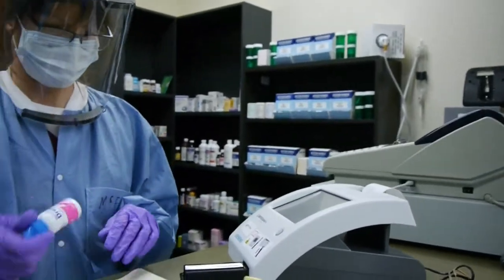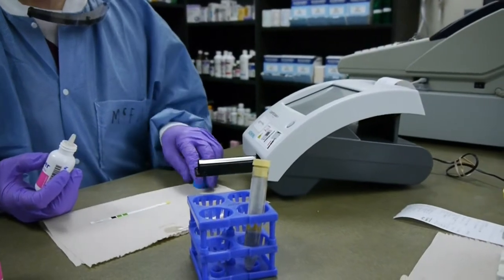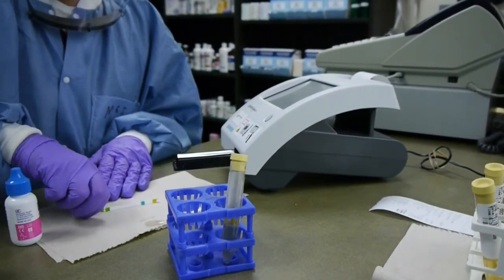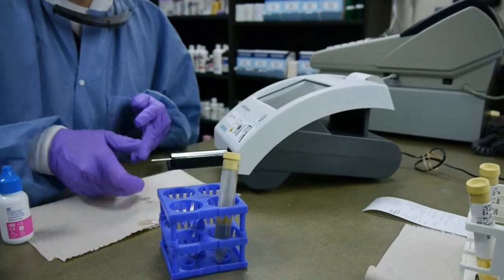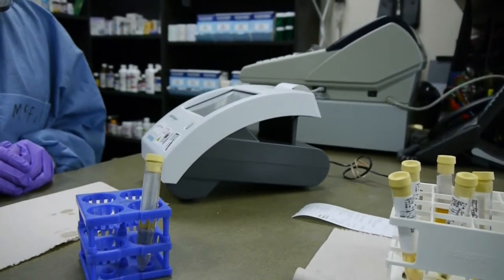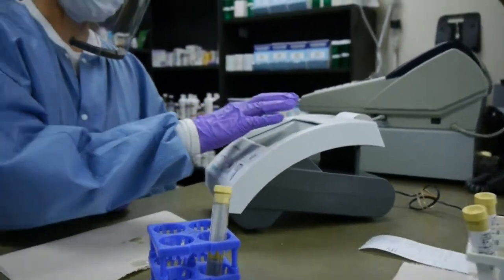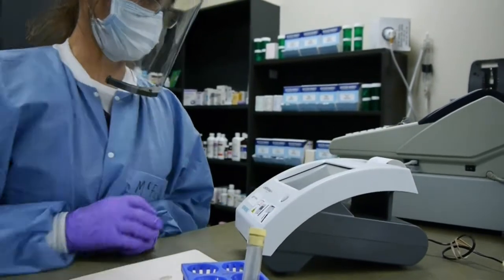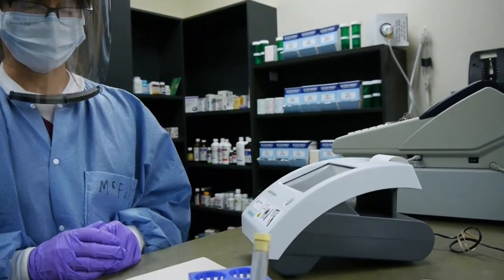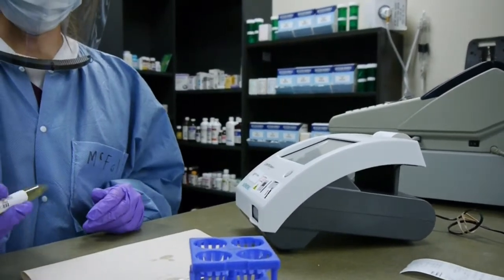We're going to do microalbumin again with a fresh strip and level 2. She told the analyzer she's doing level 2, hit start, which starts the timing, because it's a color change. It's very important that you know what's happening chemically on each of the reaction pads, be it for the dipstick or the microalbumin. It's asking for the color, which is 'other,' and the clarity, which is 'other,' since we're dealing with quality control. While it's doing its thing, we would be doing something else — maybe paperwork for your QC. If you don't document, it's not done.